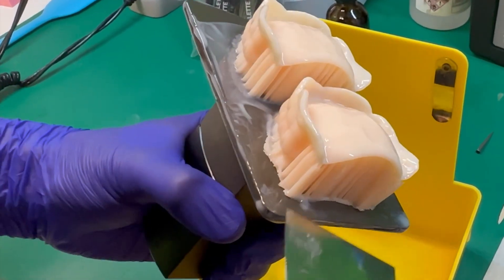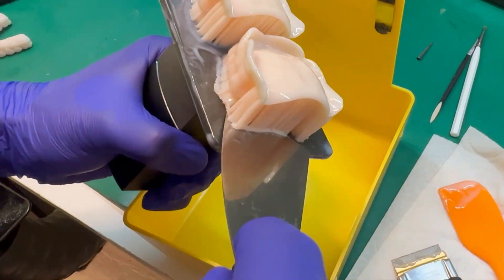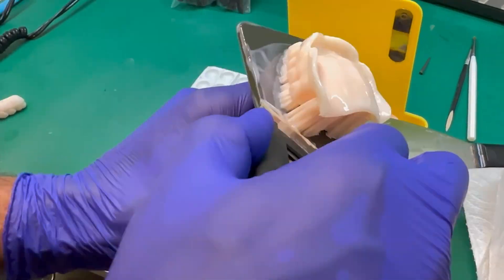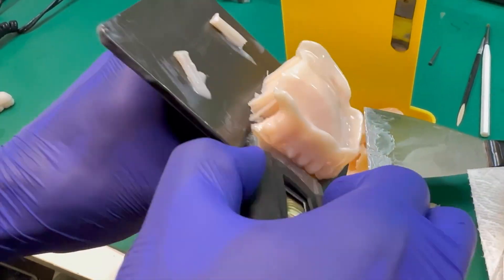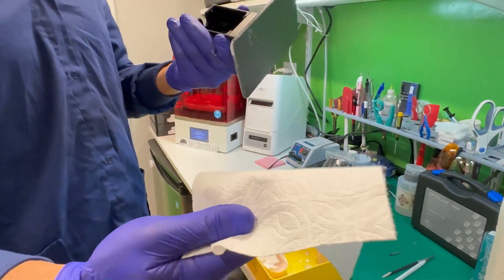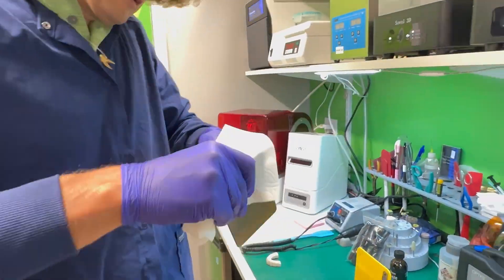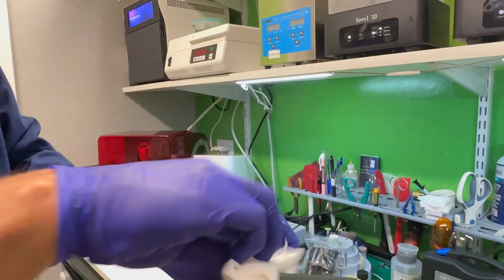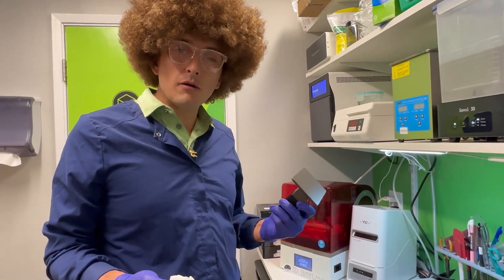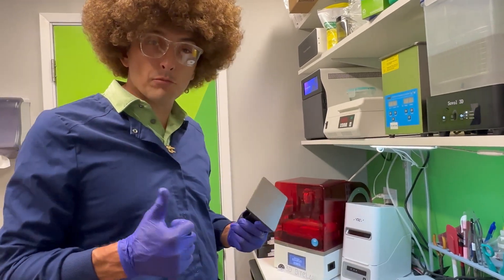Now that we have it loosened up a bit, we're going to go ahead and get under it with our paint scraper. Just to be extra safe, go ahead and wipe it down before we put it back. If you know you're changing resin, you do a more thorough job; if you know you're not, not so necessary — it's just to make sure you've got all the particles.